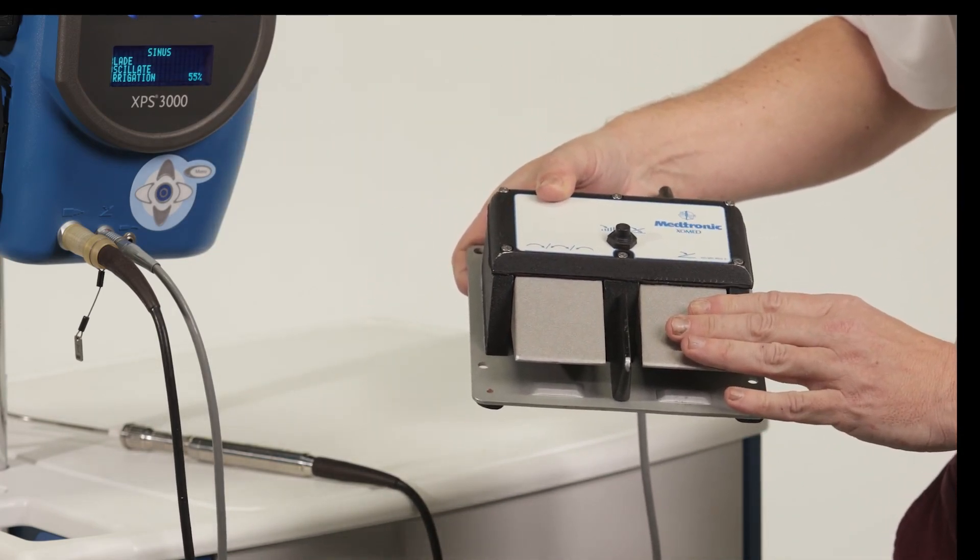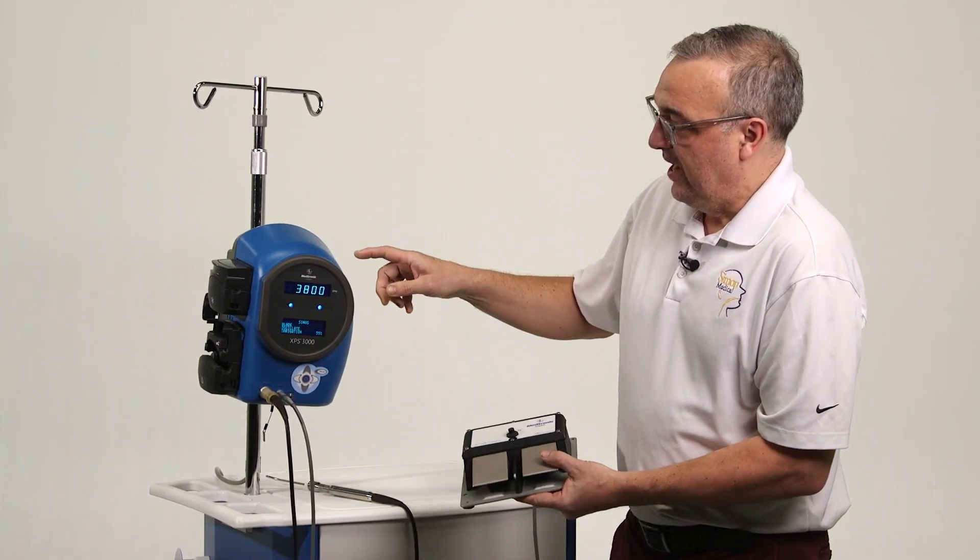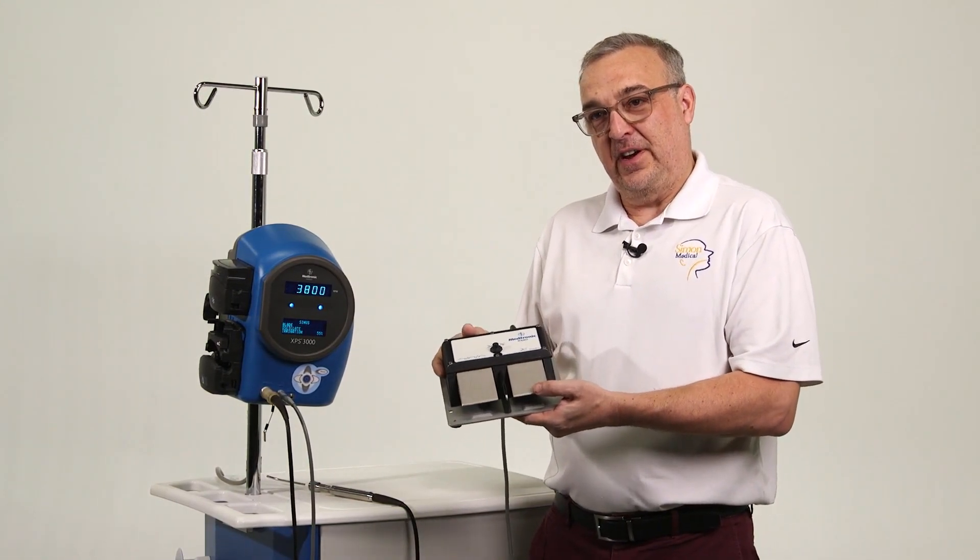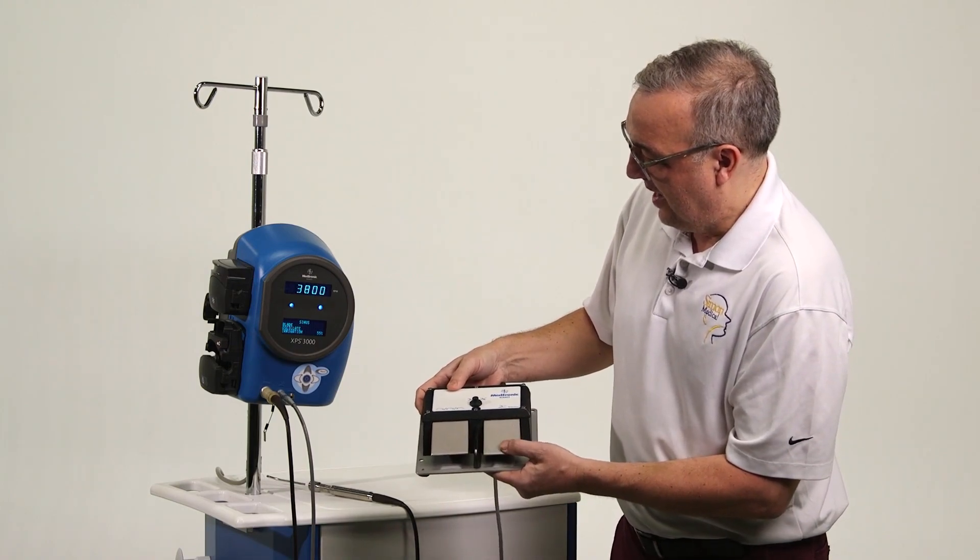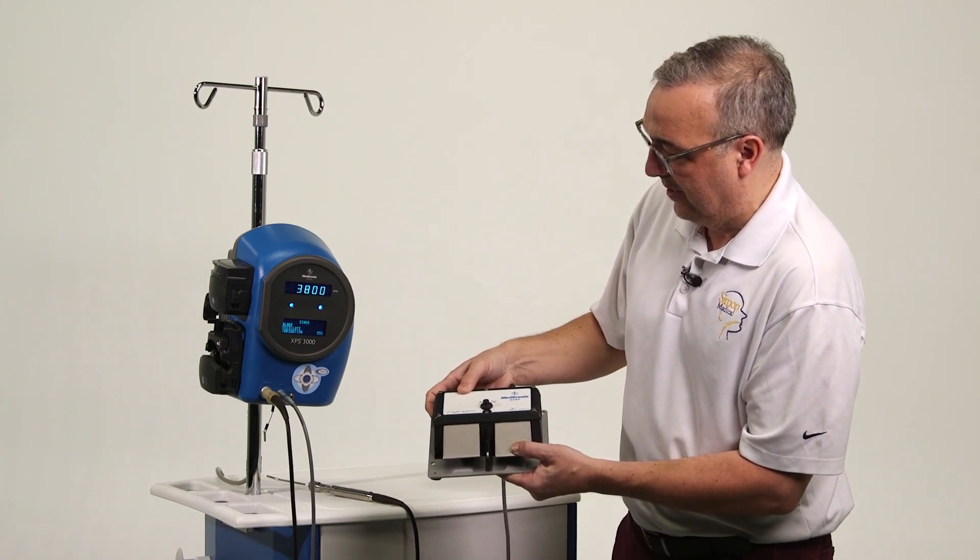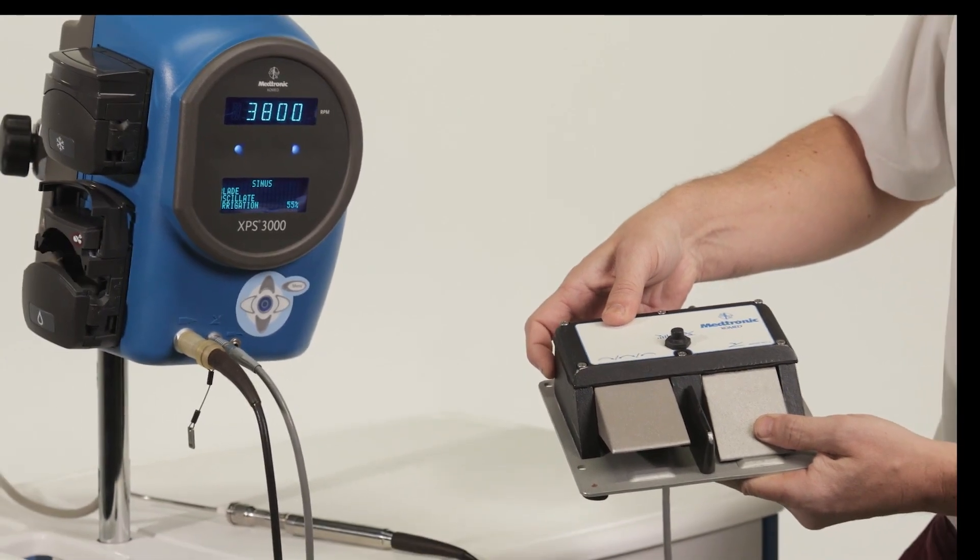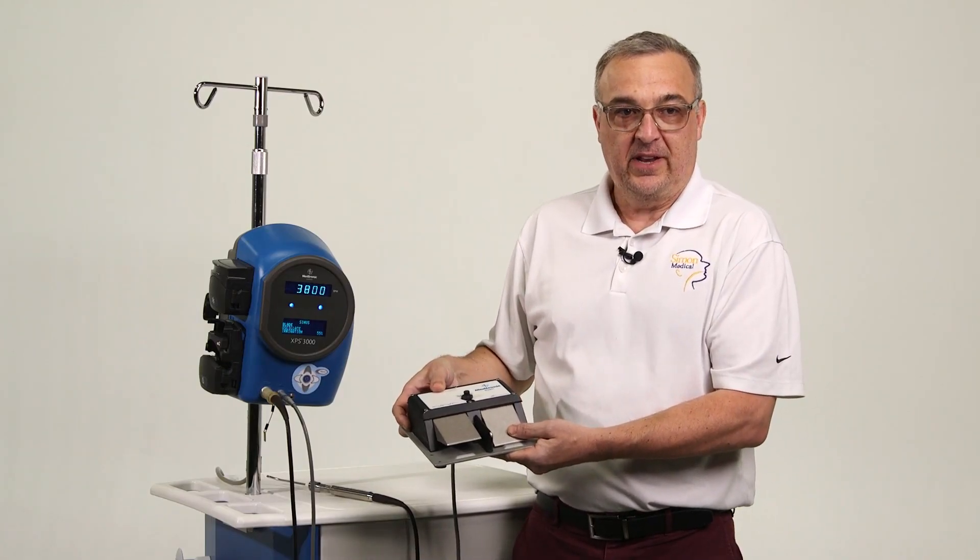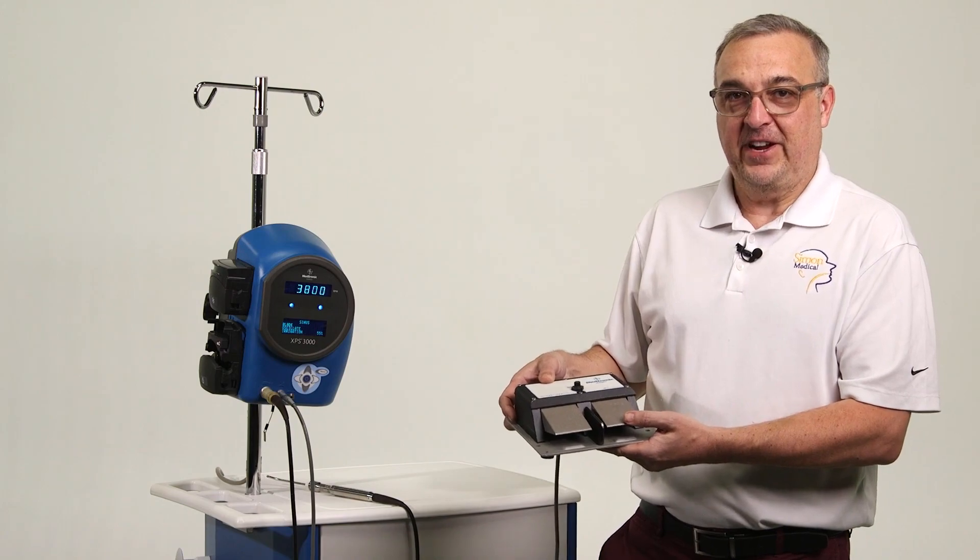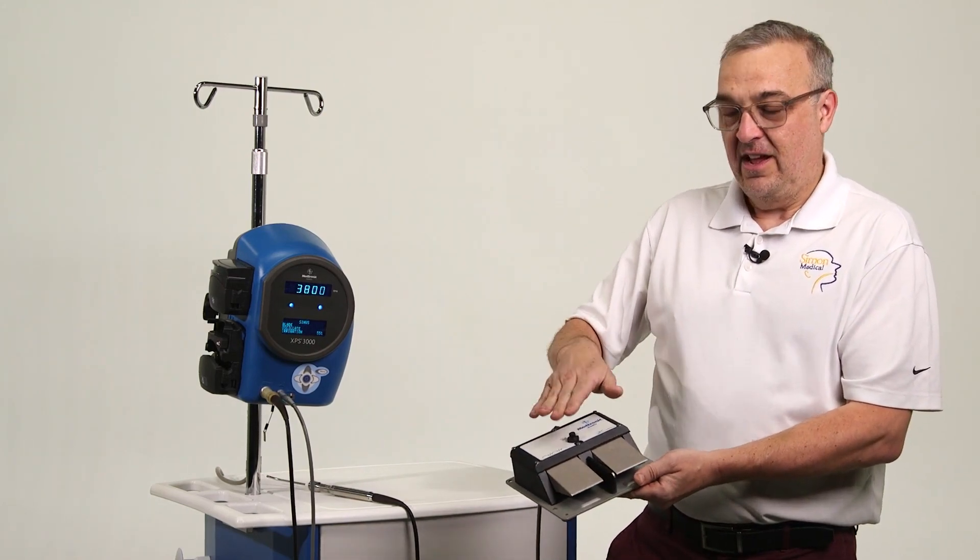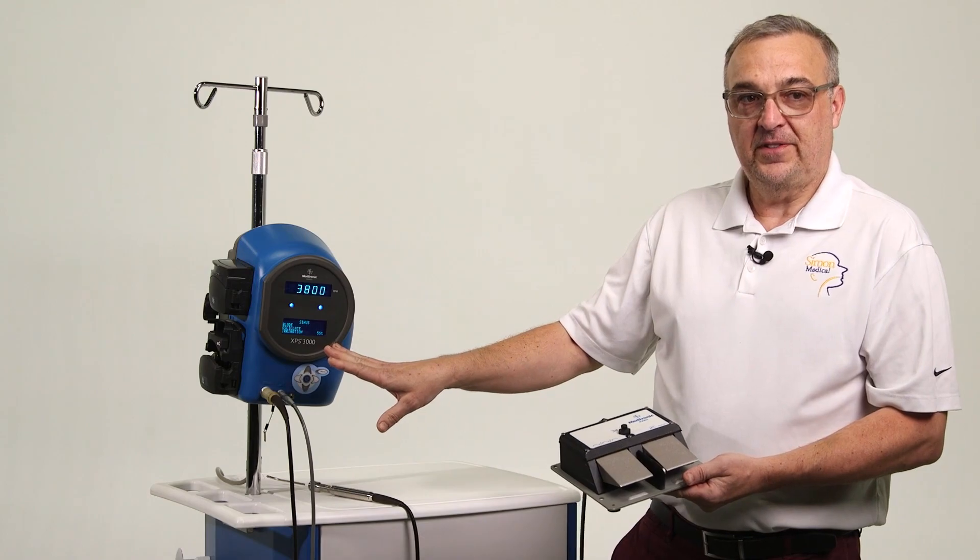The other side of this, which is useful. Some surgeons like it, some surgeons don't care about it. This is a zero to a hundred foot pedal or an incremental foot pedal. So if we press this and we press it slow, right now it's on incremental. If we press the button, now we're going zero to a hundred. So we don't have the option to go at a slower speed. So either it's fully on or fully off. Just so you know what those are. The surgeon will quickly figure it out. If they want to slow it down and it's on that setting, a simple foot tap to that button will change it back. Or you can go onto the console itself and change it back.